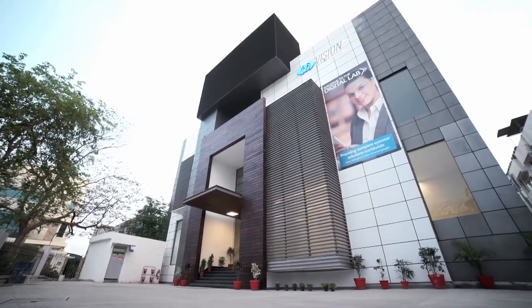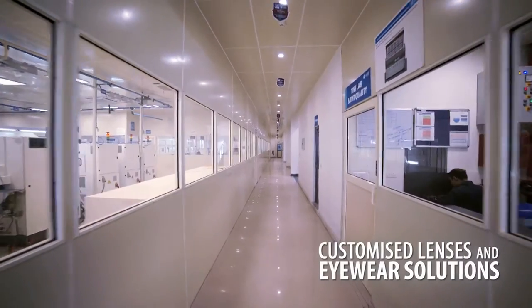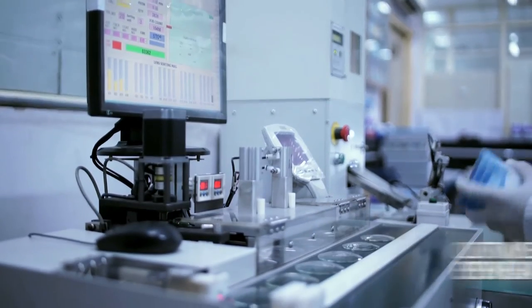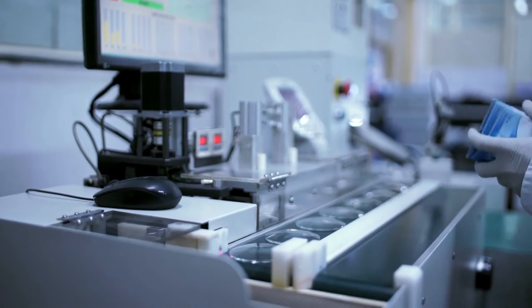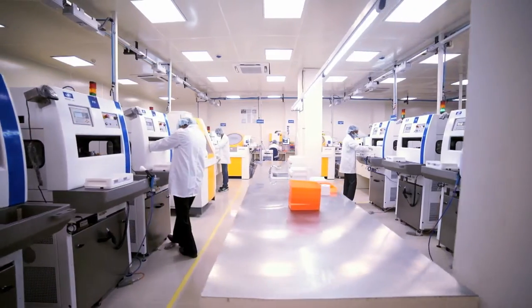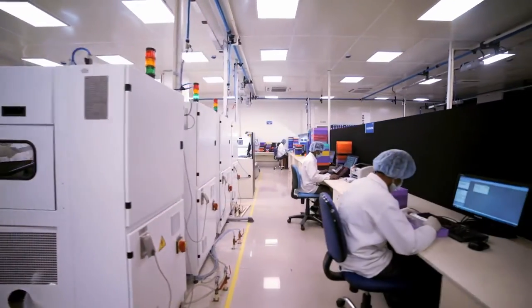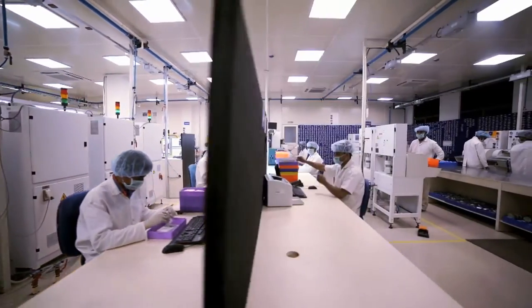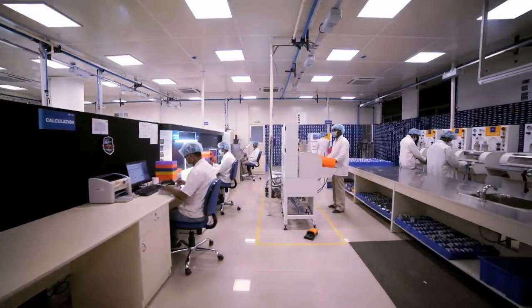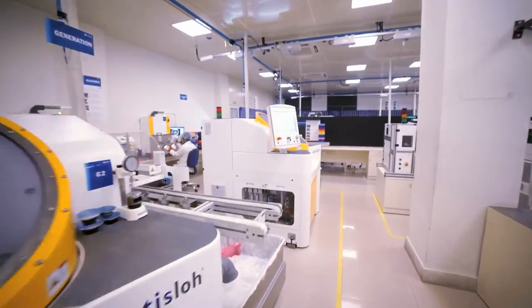With value-added products in digital designs and tailored solutions like single vision and bifocals, progressives, individual progressives, high curve sports lenses, eyewear and sunwear, and safety lenses. Our customer service department receives product orders from various customers.